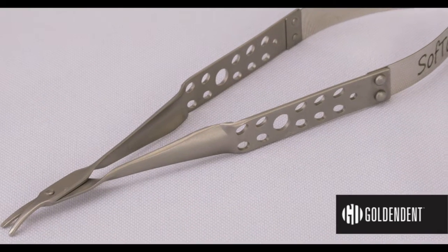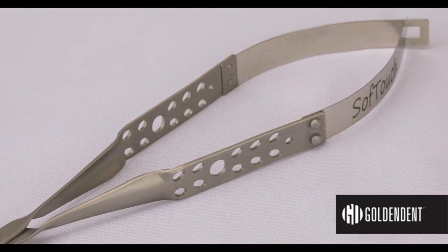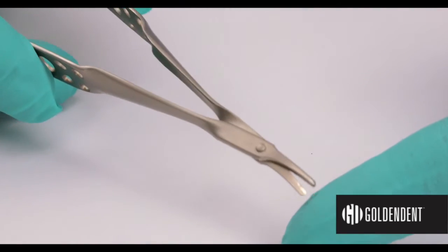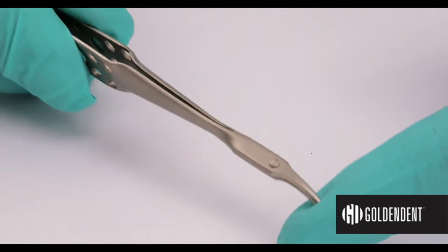The Soft Touch Suture Scissor is taking the world by storm with its revolutionary design. Using proprietary materials, a scissor that changes the way sutures are currently being removed.